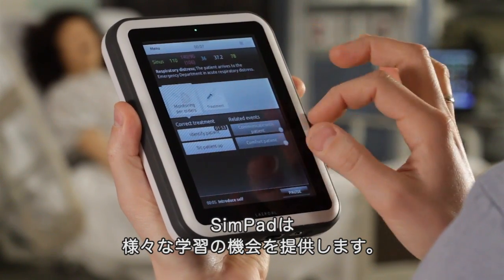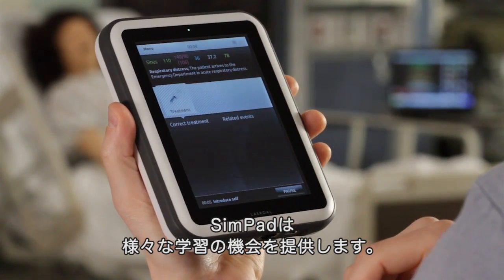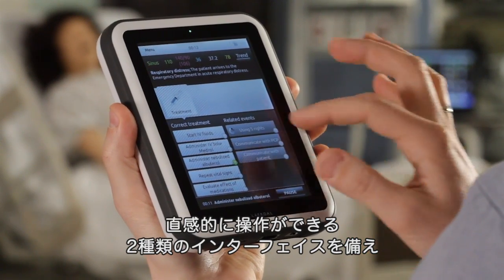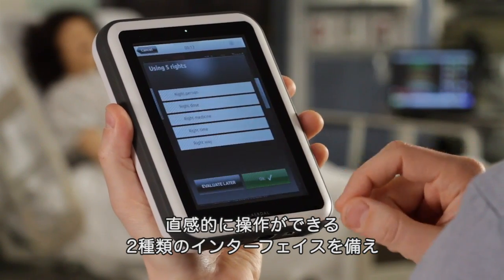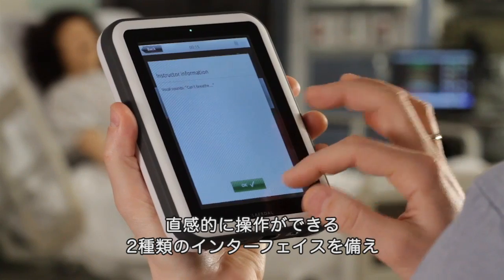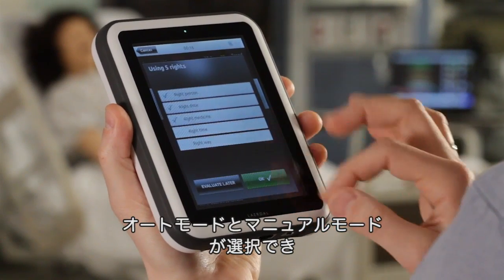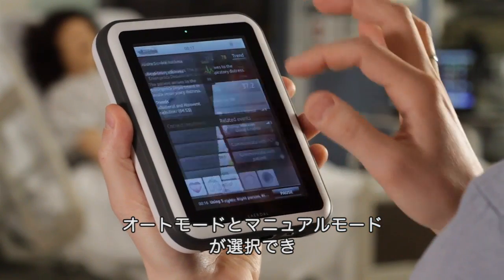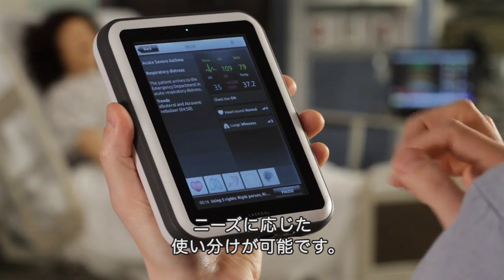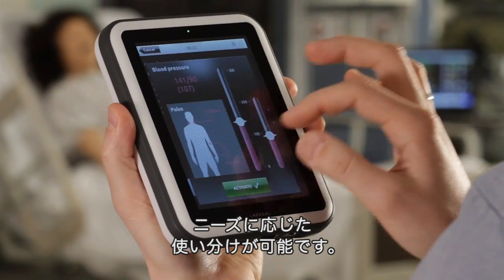SimPad's functionality gives you new learning opportunities. SimPad features an intuitive user interface, including two ways to control your simulation: automatic mode and manual mode. This allows you to tailor the simulation to meet your specific needs.